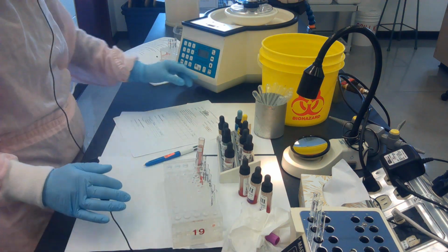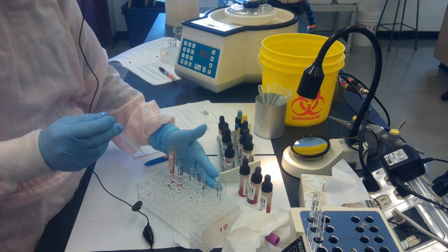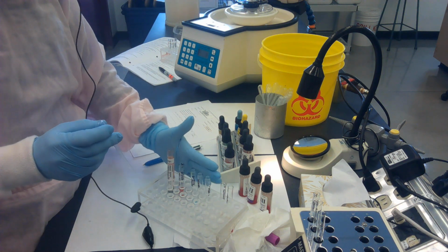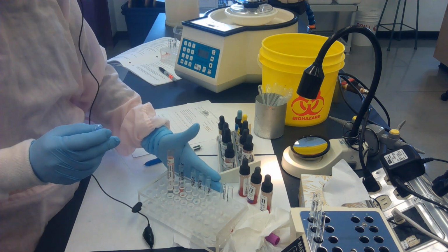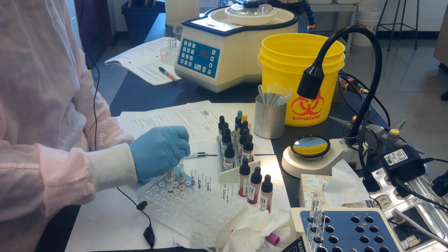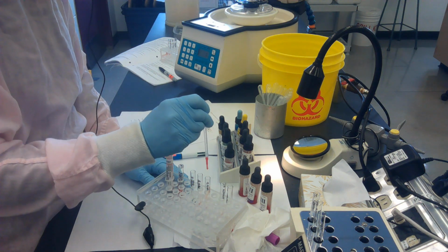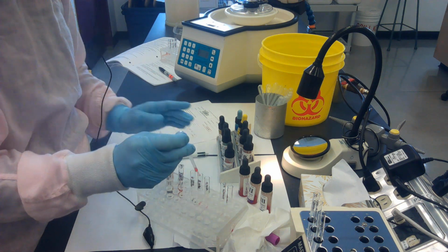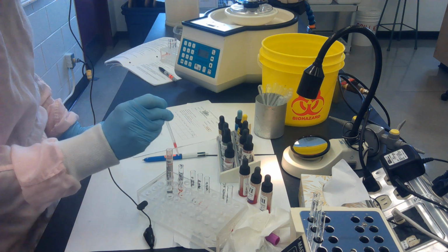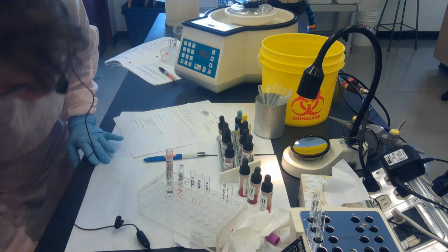So now I can go ahead and put the patient's cells into the forward grouping. The forward grouping contains anti-A, anti-B, anti-D, and if A, B, and D antigens are present on the patient's cells, they will react. So I go into my 5% suspension and add 1 drop of my 5% suspension for my patient into each of the forward grouping tubes. Notice that I'll take this pipette and throw it out as opposed to returning it to the 5%, just in case I make a mistake and don't put this back in the right spot.